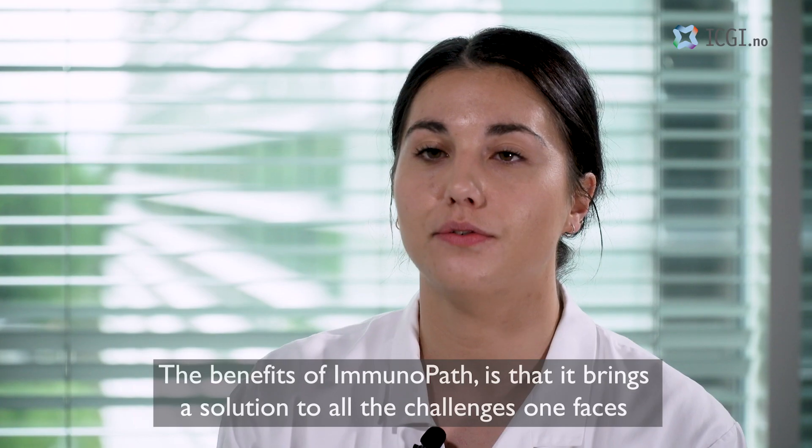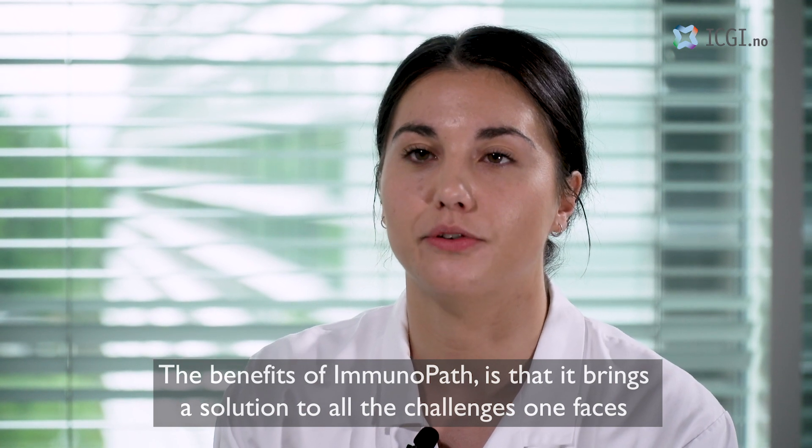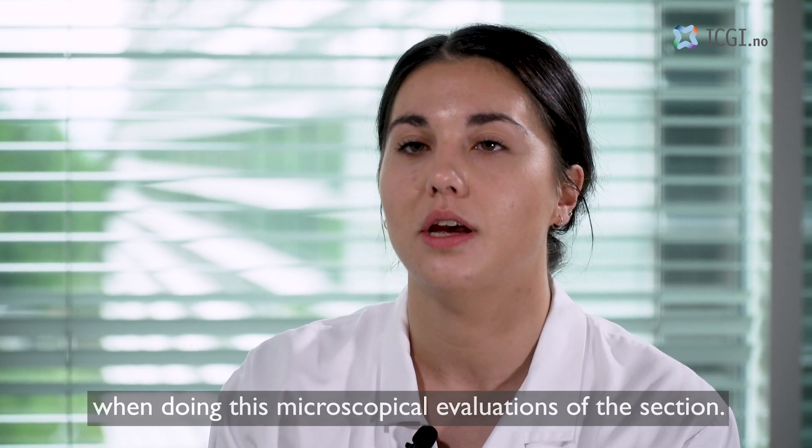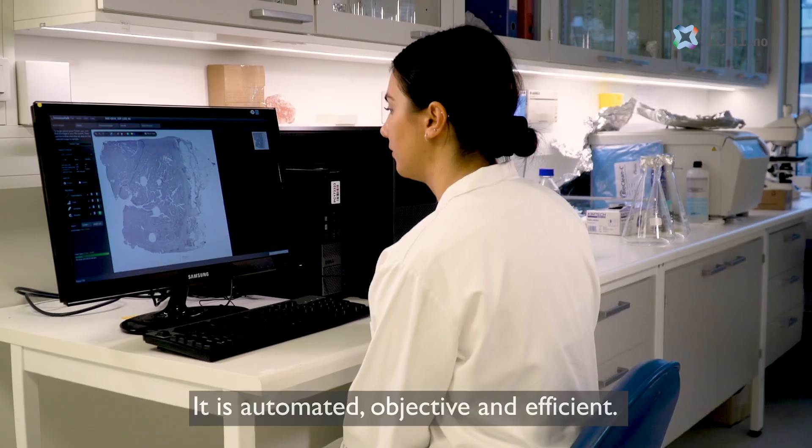The benefits of ImmunoPath is that it brings a solution to all the challenges one faces when doing this microscopical evaluation of the section. It's automated, objective and efficient.